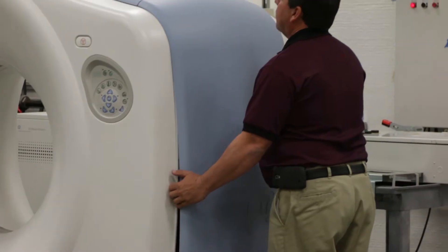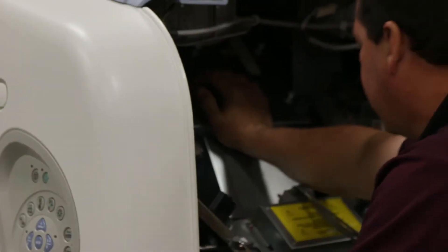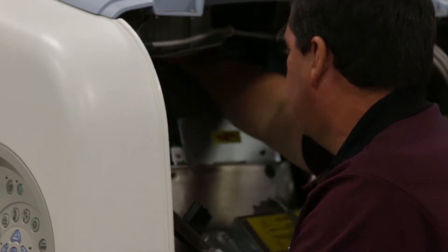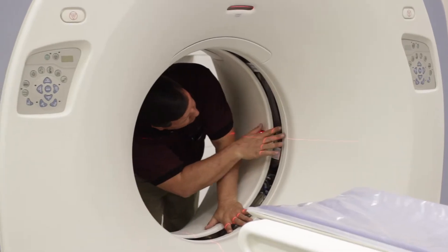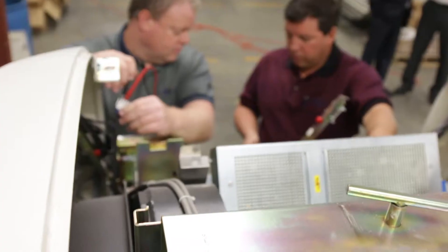RADSource has skilled service technicians on staff that can help you with your GE CT systems. With experience ranging from single slice to 64 slice CT systems, there's a lot of knowledge to help you keep your customers' equipment up and running. This system is one that RADSource brought in to refurbish for our customer. It has already been disassembled, painted, tested, and reassembled. It is being tested again to ensure final functionality before it leaves our warehouse.